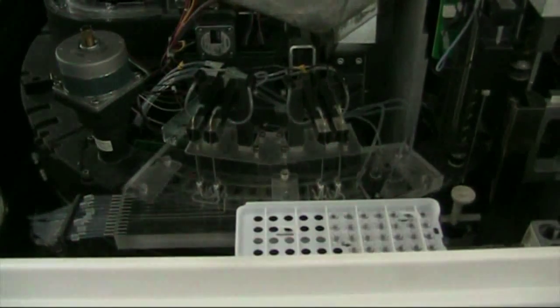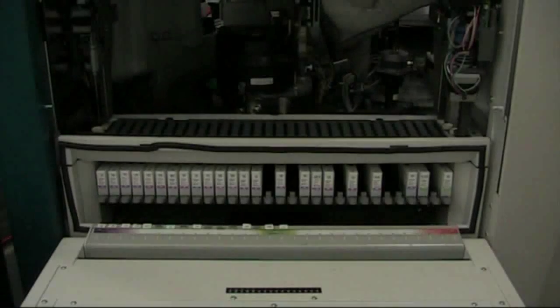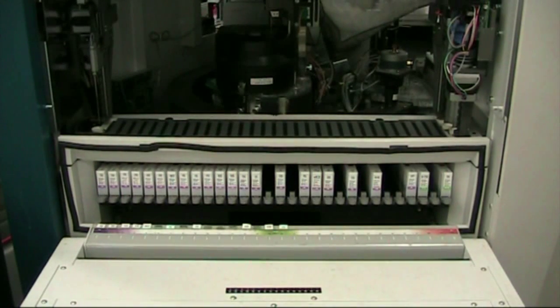If we move around to the side of the machine, we can see the reagents. We've got about 30 different reagent bases — mainly hormones, but occasionally drug assays or virology-type assays can be done on the same machine. From the left-hand side we've got thyroid stimulating hormone, T4, T3, and hematinics — vitamin B12, folic acid, folate, and ferritin. Then you can see total HCG, which might be used as a tumour marker or for pregnancy, and PSA — prostate specific antigen — which is another tumour marker.